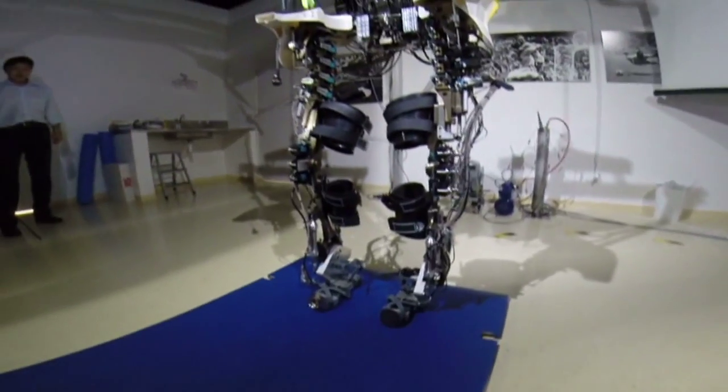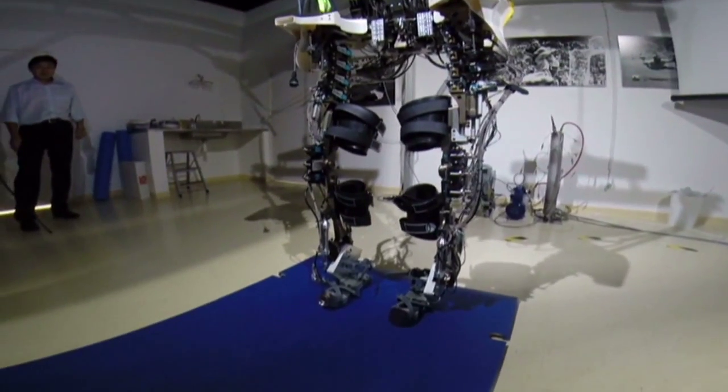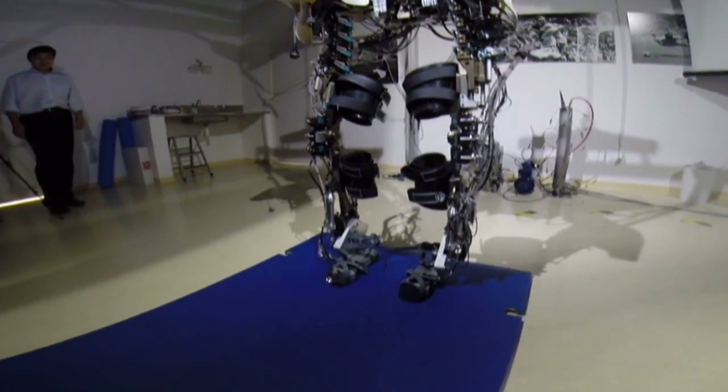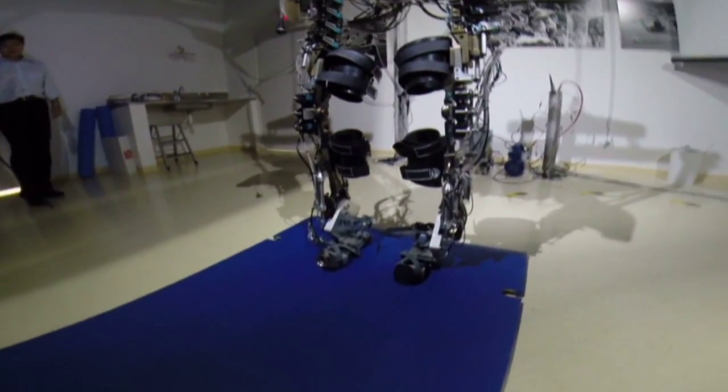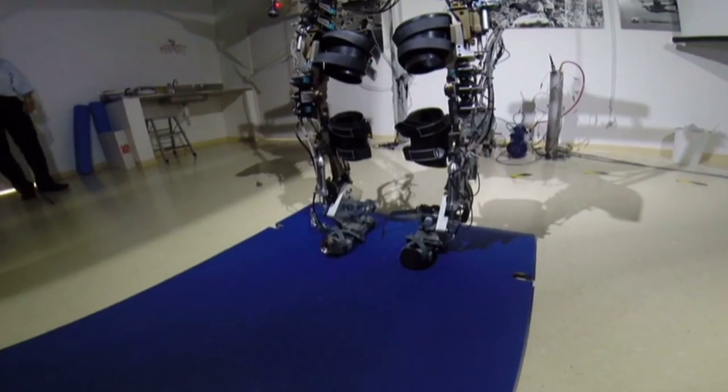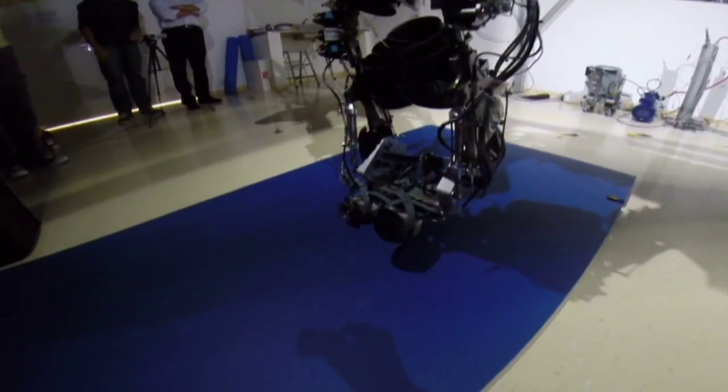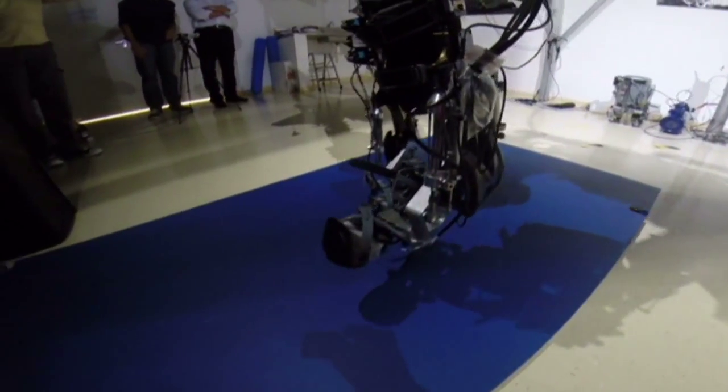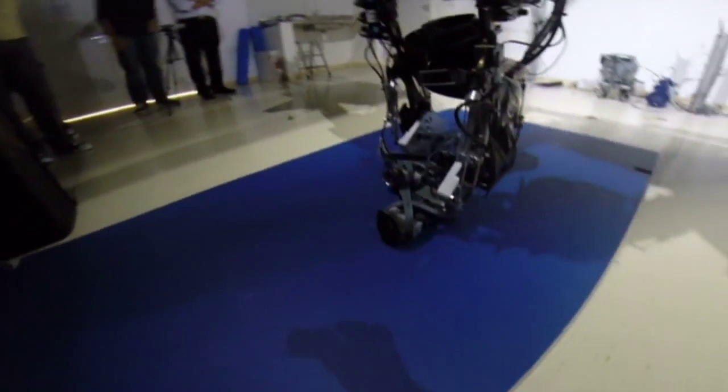Over their Brazilian soccer jersey, a volunteer with the Walk Again project will start the World Cup with a ceremonial first kick. They will be suited with an exoskeleton that takes cues from the user's brain activity to power his or her steps forward.